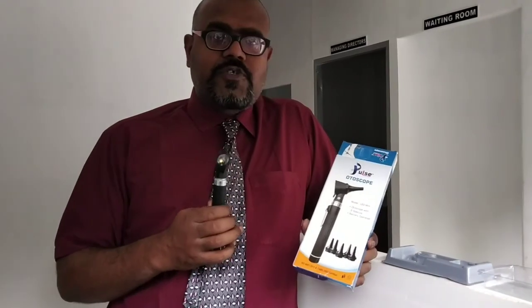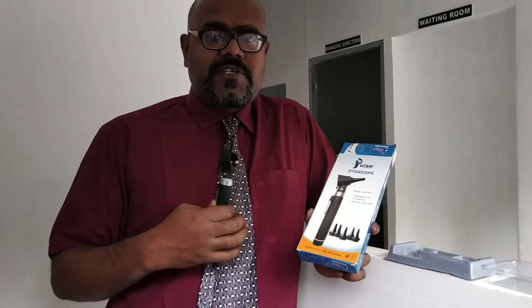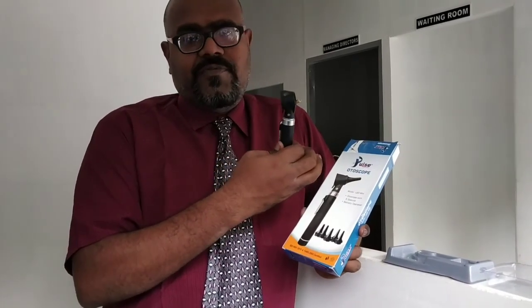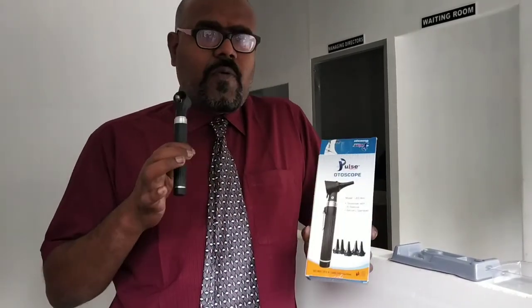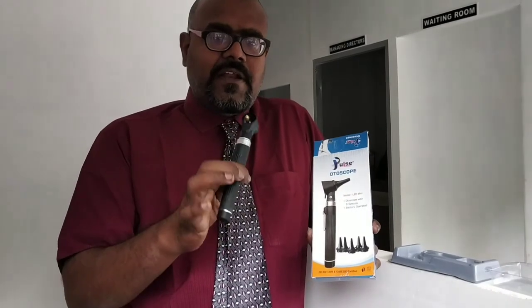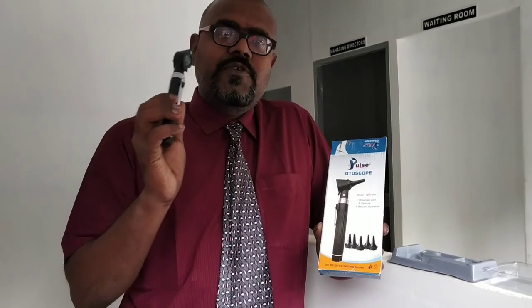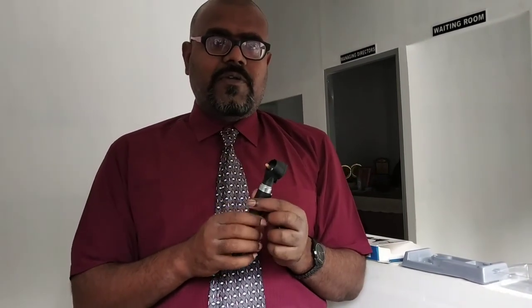I hope you understand what an otoscope is and how we can use it. There is no need for much installation process, unlike other equipment like the ultrasound physiotherapy unit or the fetal doppler. There are no electronic components inside. Only a small LED light is there. You can fix the speculum, and we can use the magnifying glass. We can see the internal organs very clearly. Okay, so there is not much demonstration, and no dismantling and all. So I hope you can understand very clearly about the otoscope.